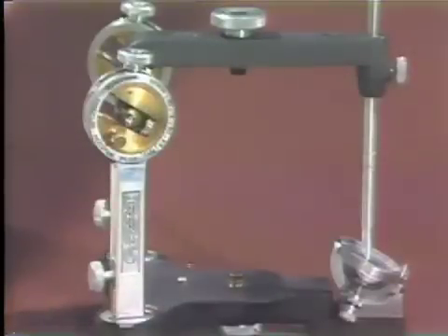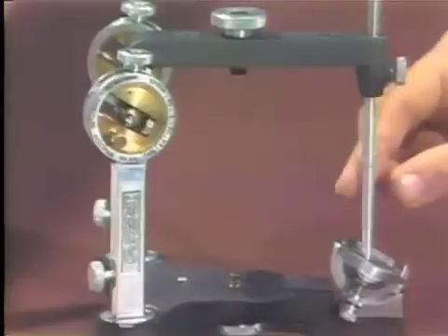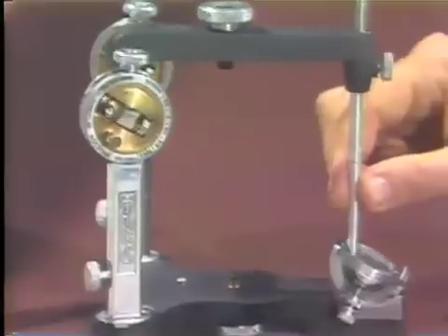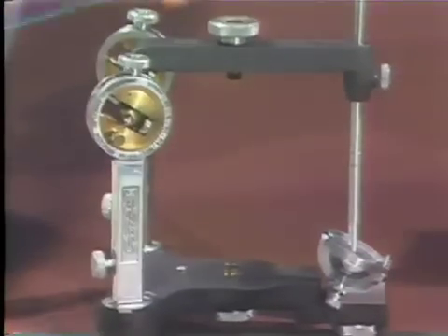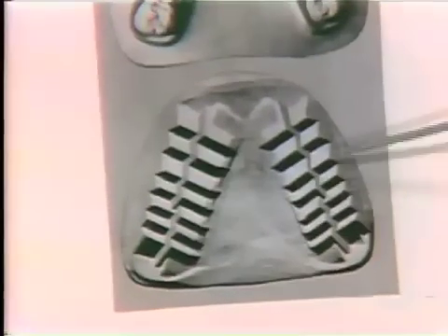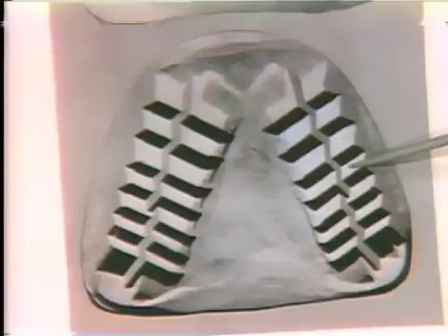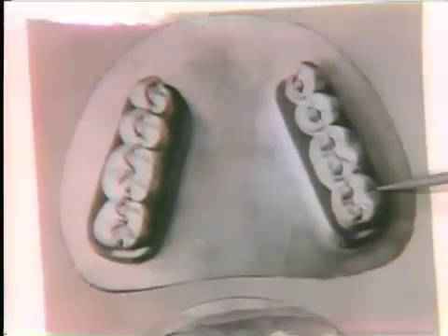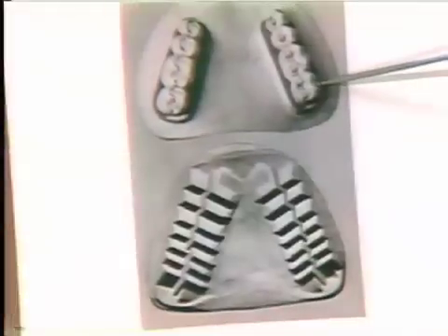The cutting tools were also positioned with a very specific compensating curve, and the cutting tool was moved through its various movements — working, balancing, protrusive — thereby cutting on the clay a specific primordial form. That primordial form has very specific angulations dictated by the geometry of the cutting system. From the primary or primordial forms, Dr. Giese carved the occlusal surface of the 33-degree posterior tooth, placing the spillways and various grooves to make, from this primordial form, a representation of a natural anatomical tooth.